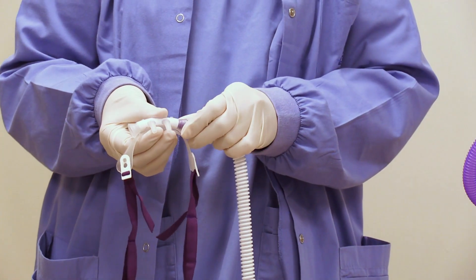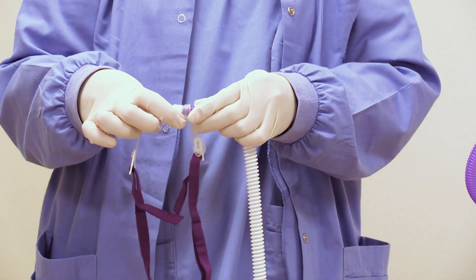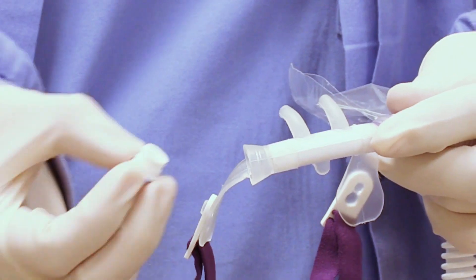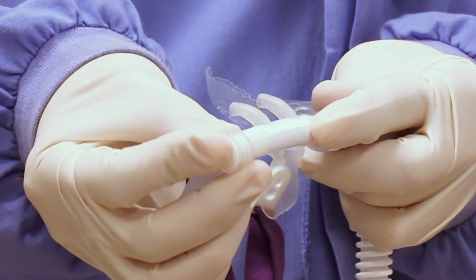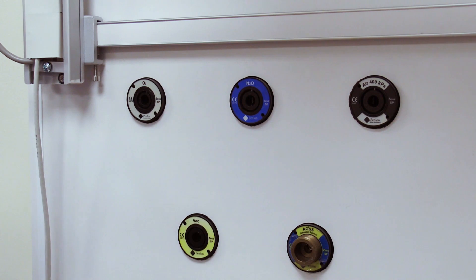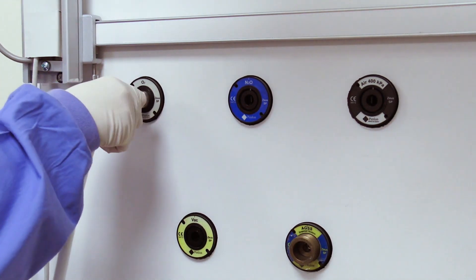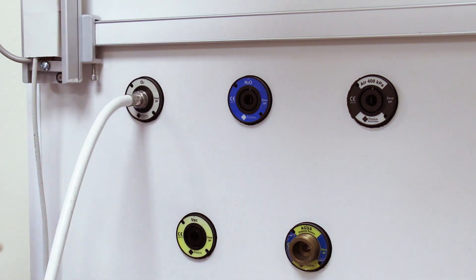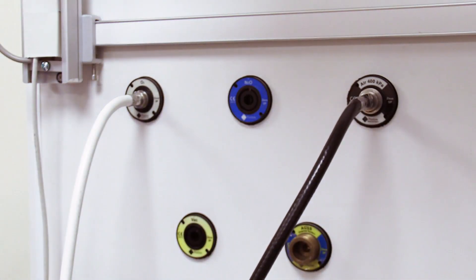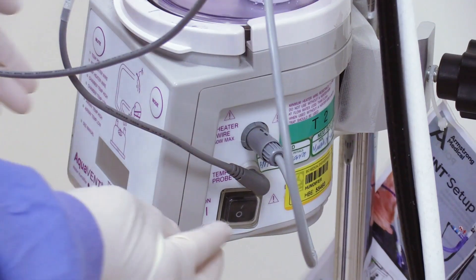Now connect the nasal cannula to the filter and then to the breathing tube. Some nasal cannulas allow fixing the tube on either side, so simply insert the tubing into the side that is comfortable, and close the open end with the white cap provided. Connect the oxygen tubing to the pipeline supply — the machine will sound an alarm which will stop once you connect the tubing to the air pipeline supply. Now connect the power supply and switch on the machine.